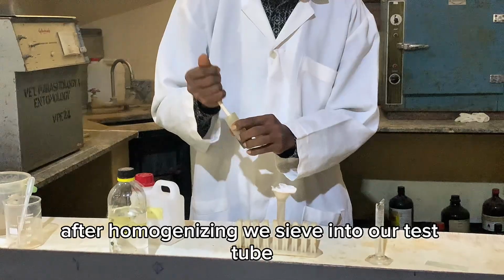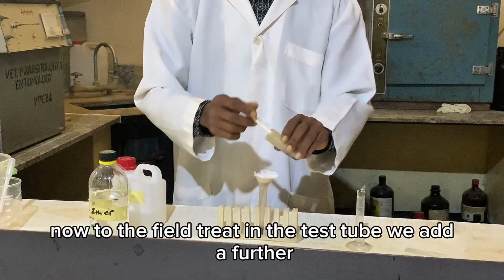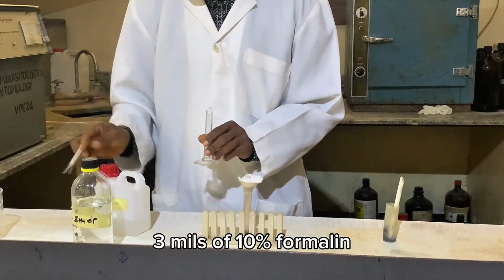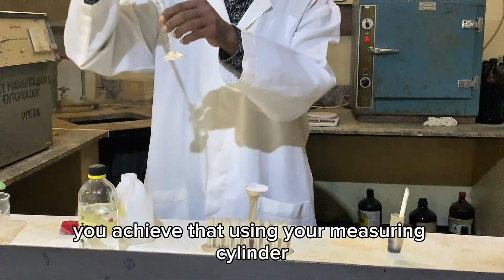After homogenizing, we sieve into our test tube. Now, to the filtrate in the test tube, we add a further 3 mils of 10% formalin. You achieve that using your measuring cylinder.